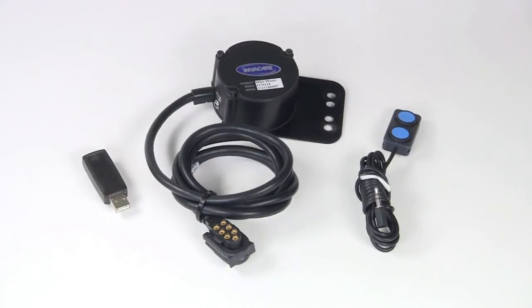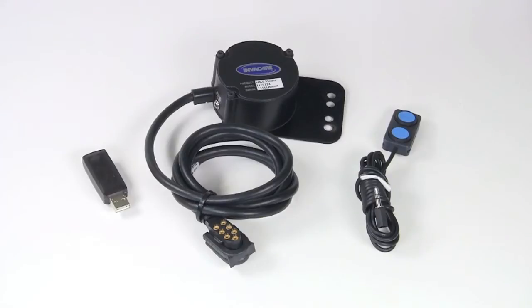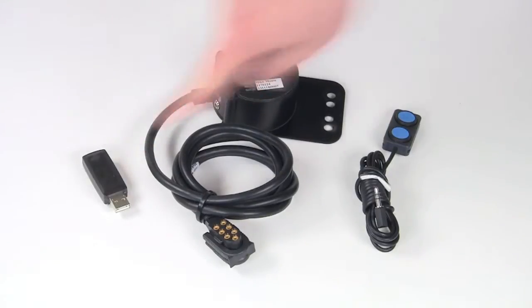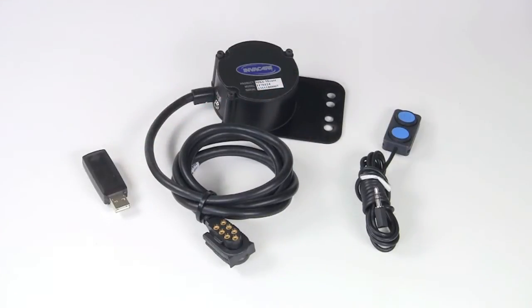The USB mouse dongle, which will be paired through the USB drive of the computer or AAC device at the factory. And finally, a stereo switch, which will become the left and right click for the RF mouse.